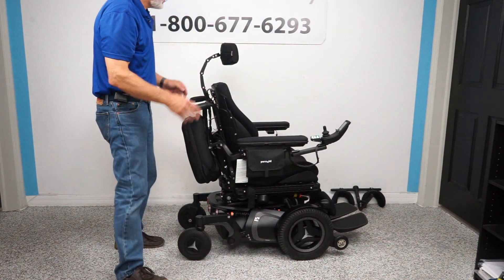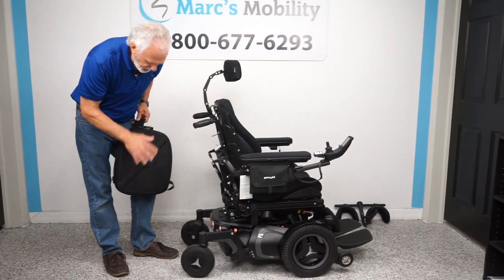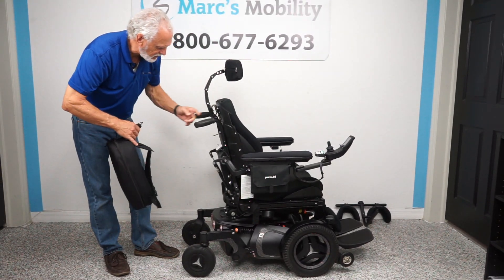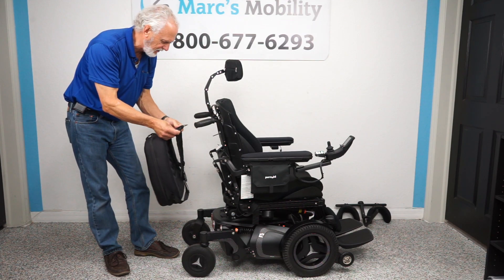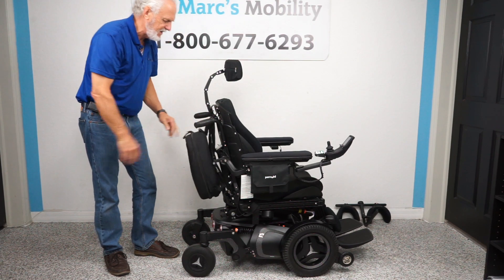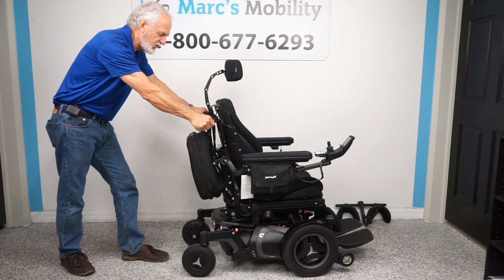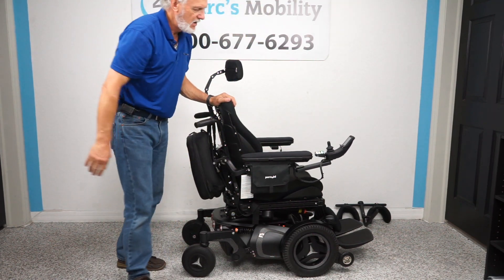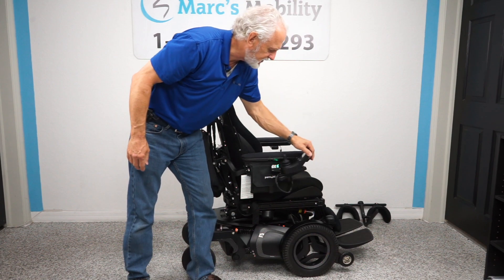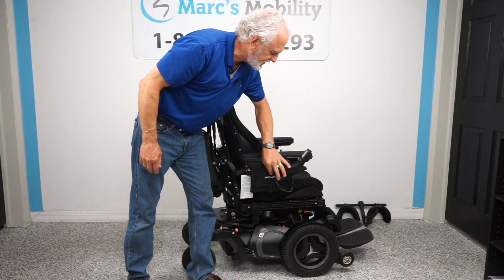The chair also features a fully adjustable headrest. There's a hard casing with bag hooks so you can hang grocery bags, or use the included bag that hooks on right there. A custom push bar is also included. To recap the custom accessories: custom push bars, custom bag, bag hooks, gel arms, and a swing-away joystick that lets you get closer to a dining table without the joystick getting in the way.